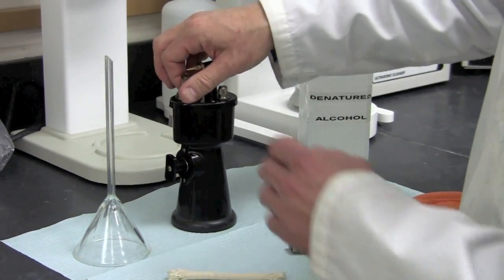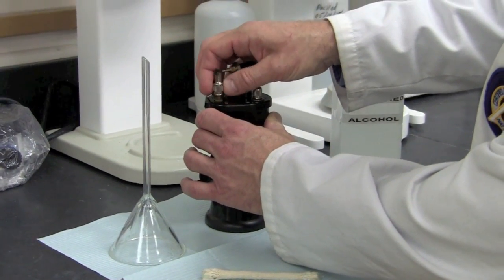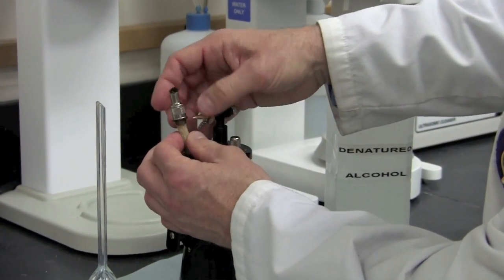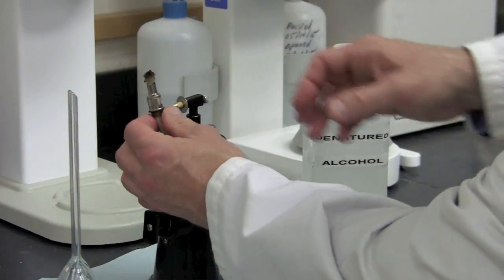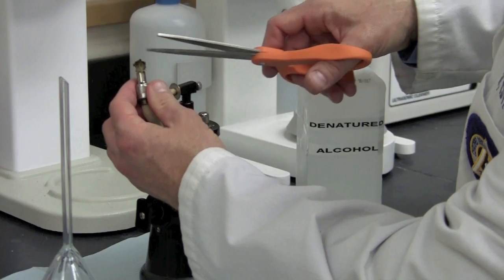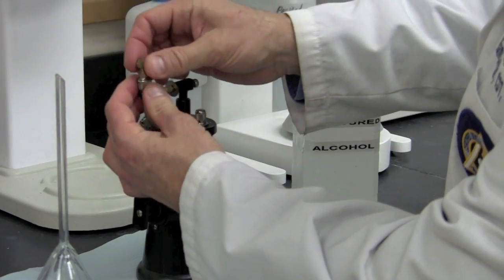The first thing we're going to check is the wick. Check to see if the wick has got charred areas and is hard, as this could prevent lighting. If we do see that, simply unscrew the wick holder and turn the wick to reveal wick that needs to be cut off. Get a pair of regular utility scissors and cut the tip of the wick to reveal a fresh wick.